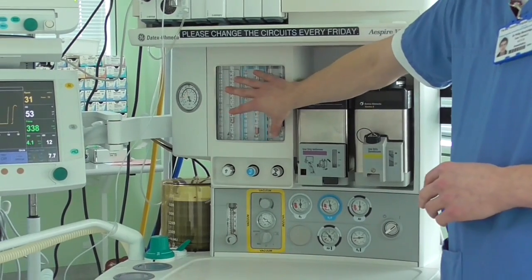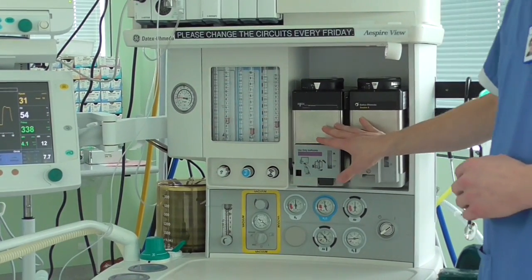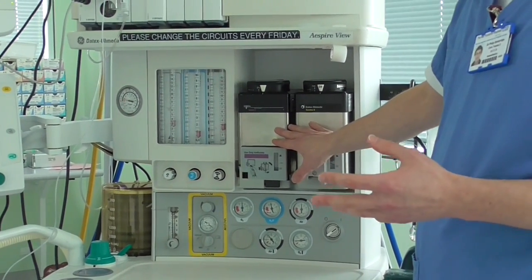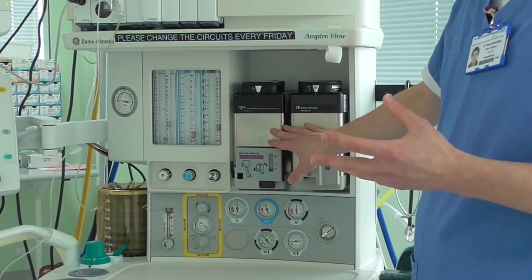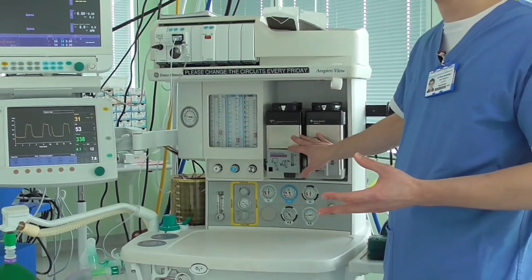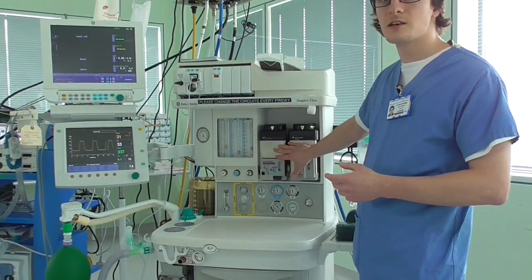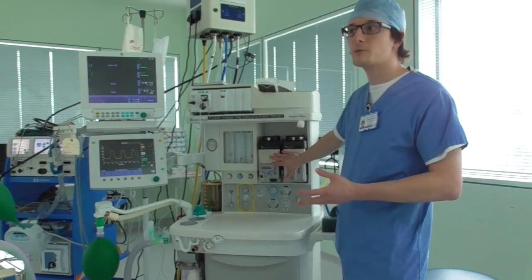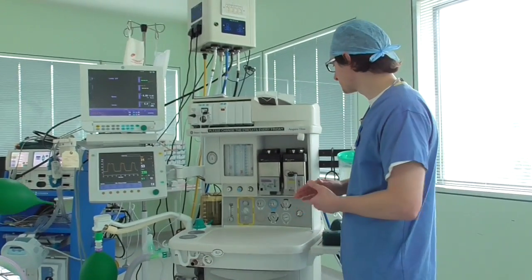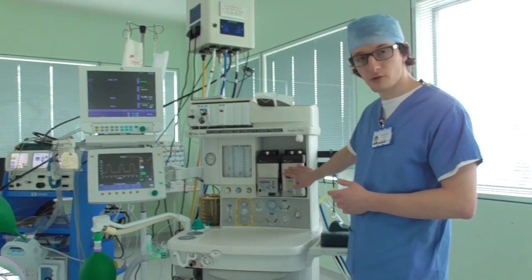This gas proceeds through one or two, or no, vaporizers, adding an anaesthetic agent to the mixture. These anaesthetic gases are what keeps you asleep during your operation, generally speaking. The two vaporizers here contain isoflurane and sevoflurane.